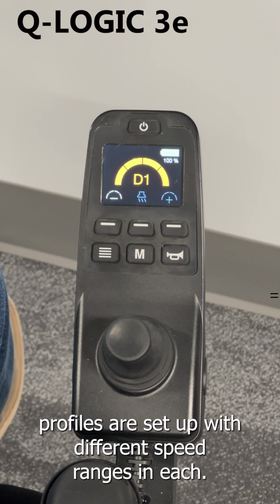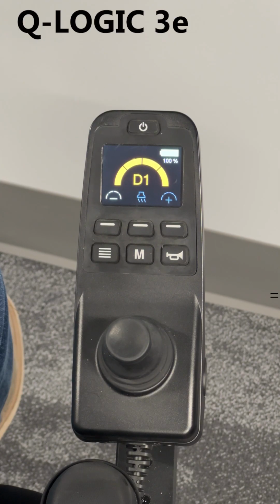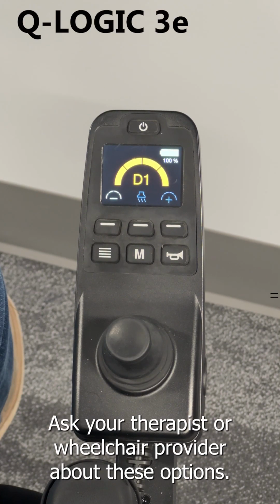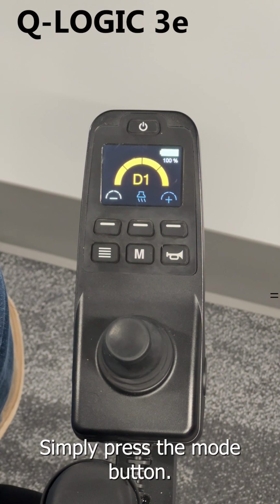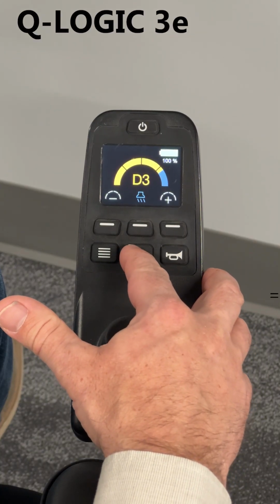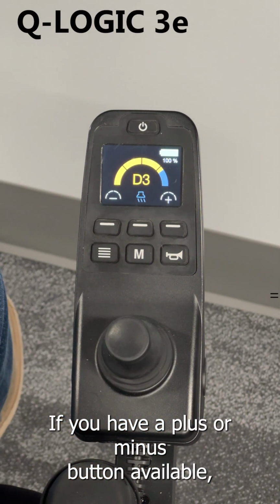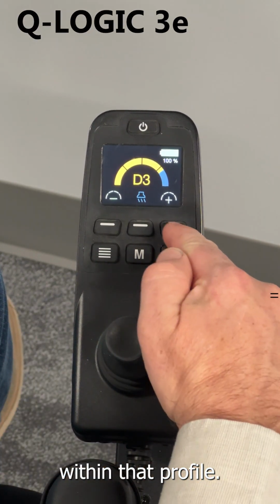Your drive profiles are set up with different speed ranges in each. These can be customized, or you can choose to have less than 4. Ask your therapist or wheelchair provider about these options. To change drive profiles, simply press the mode button. If you have a plus or minus button available, these allow you to increase or decrease speed within that profile.